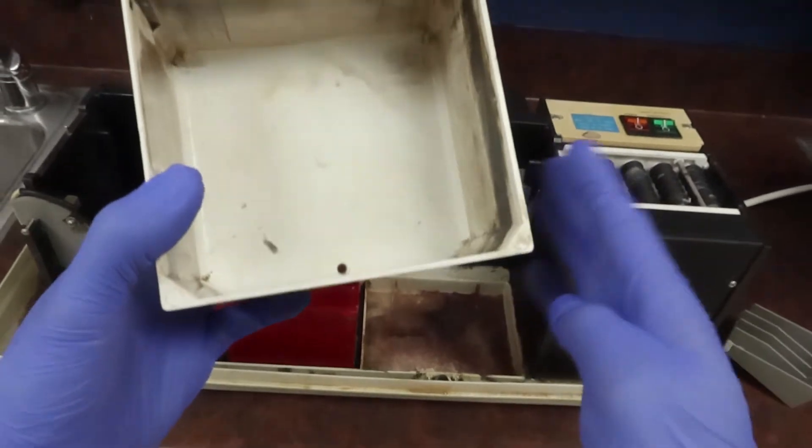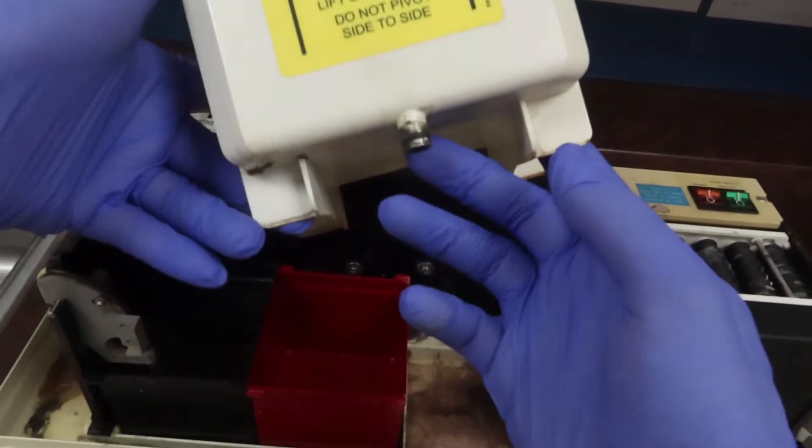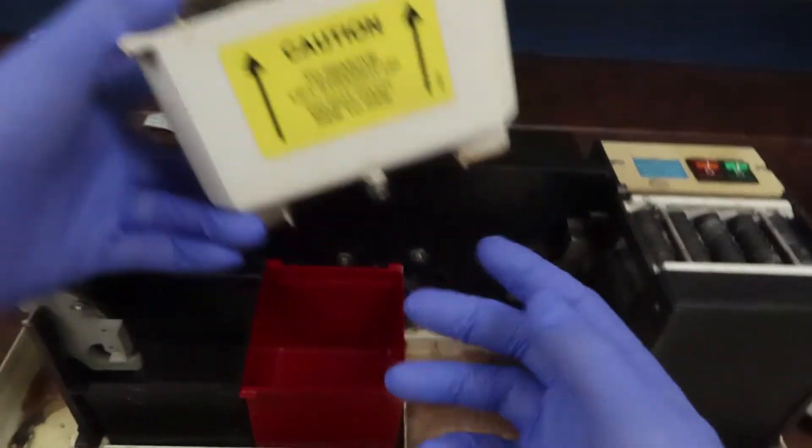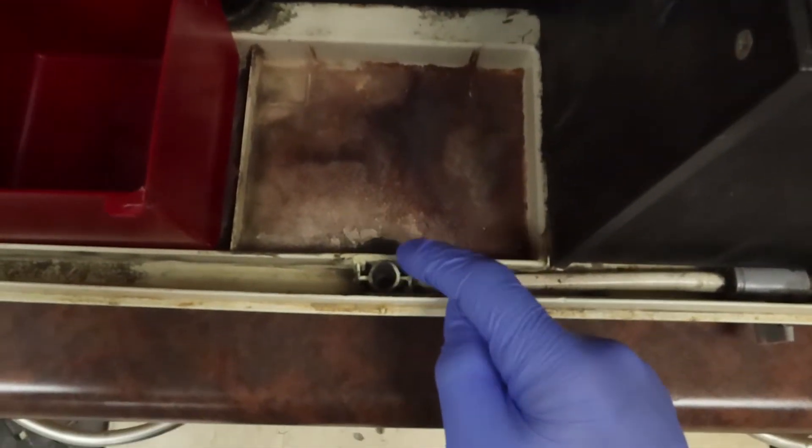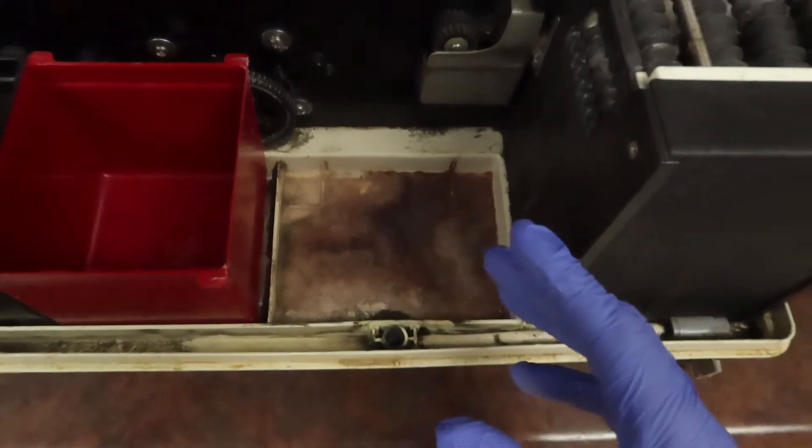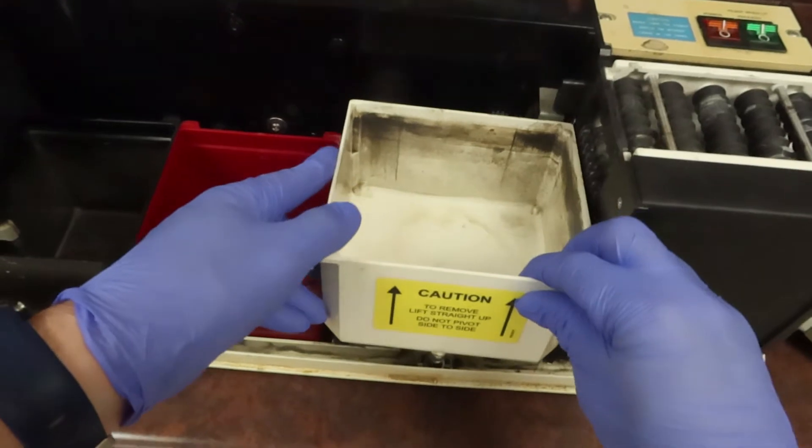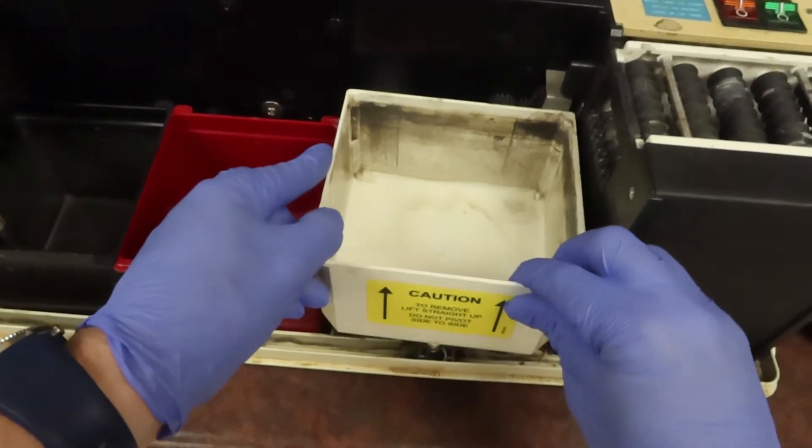This is going to be special because our actual water bin is going to have this little drain tube right here at the bottom, and this has to fit into a special spot right down here that must be specifically secured to not have any leaking in the system.